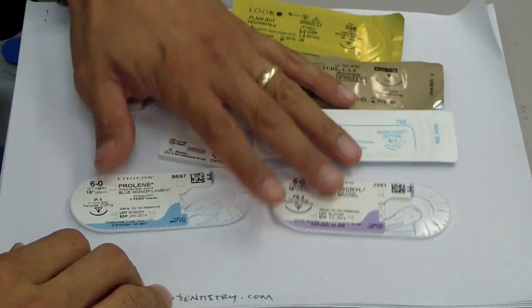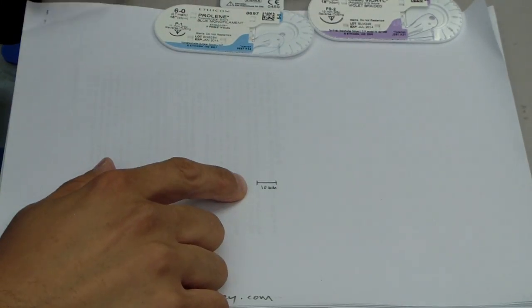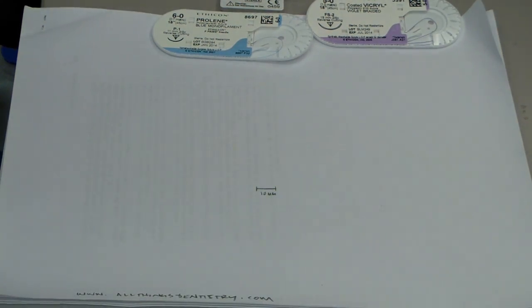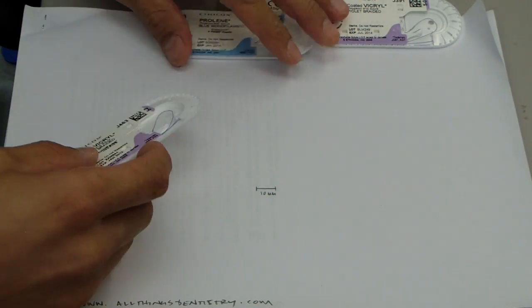Let's start with the old school. Now we're gonna have a little, this is 10 millimeters and it kind of gives you an idea of the length of the needle. Let's start with old school silk.